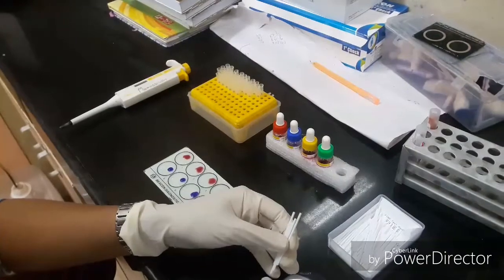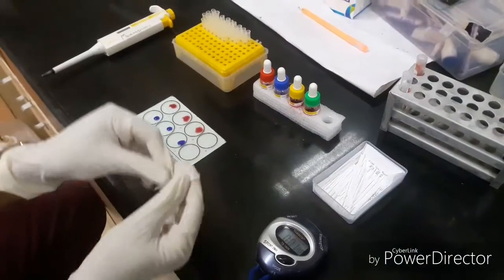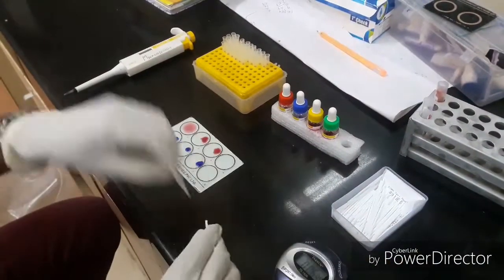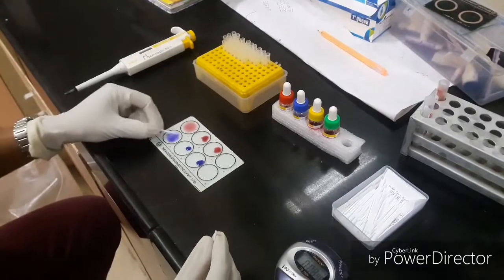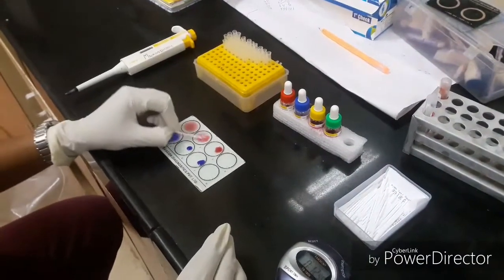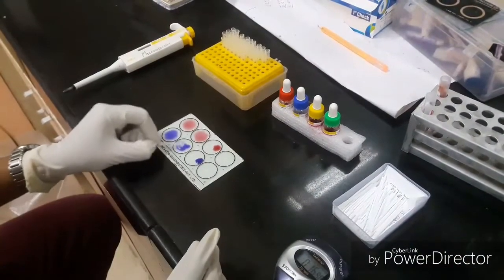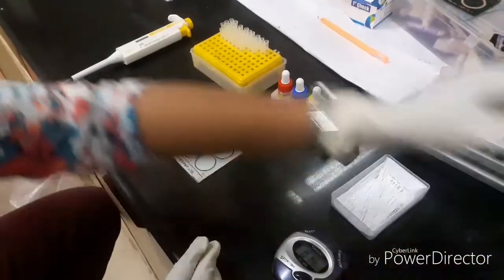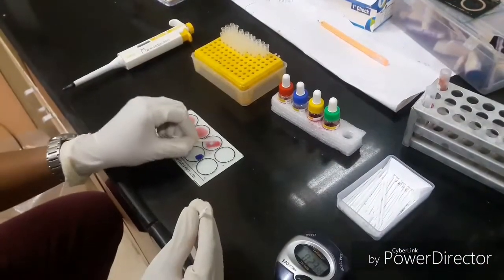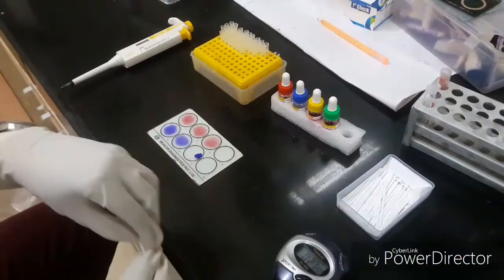Please note that we have to rotate the slide to and fro for about one minute. The timer starts at the beginning of mixing the serum with the antigens. After one minute, we check for the presence of clumping, which is due to agglutination.